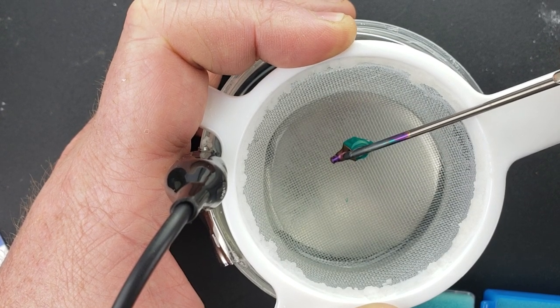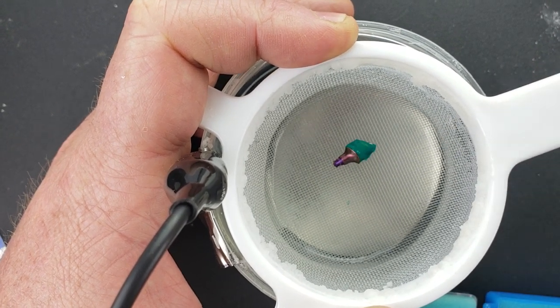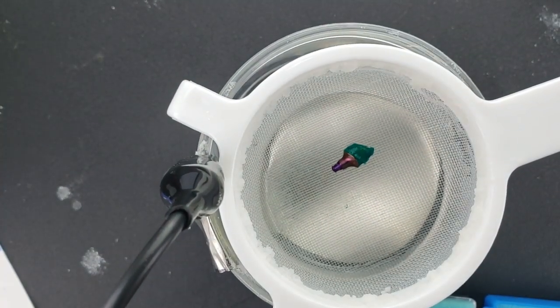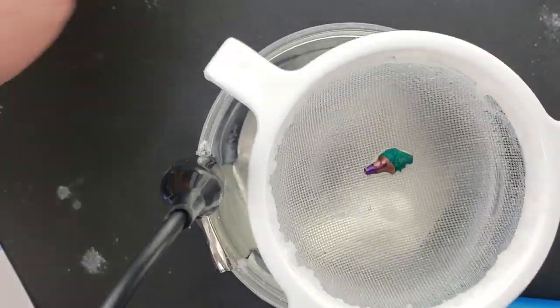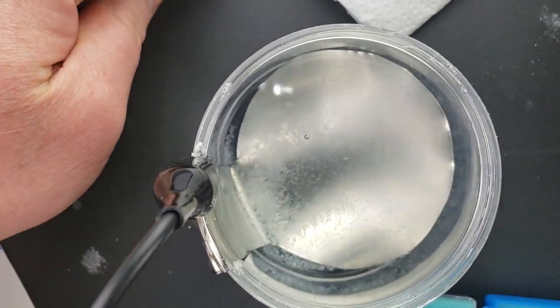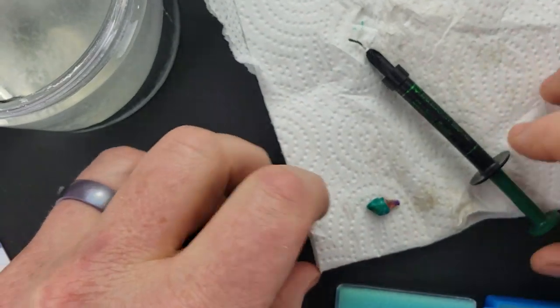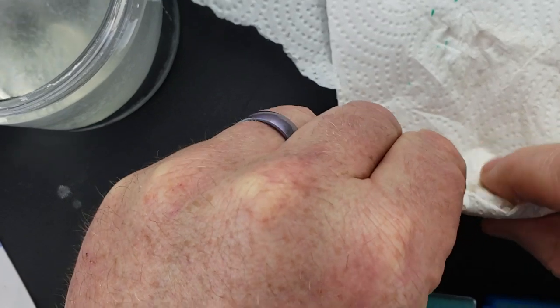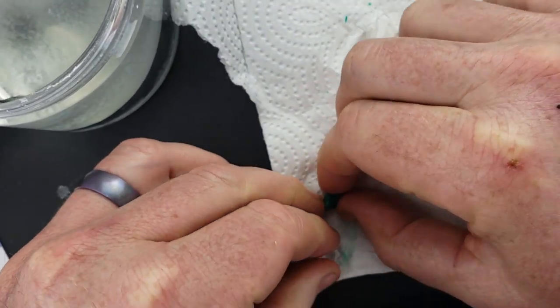When sitting under the gingiva, this is going to blend in nicely and not show any color of the abutment shining through. Now we dry this off.